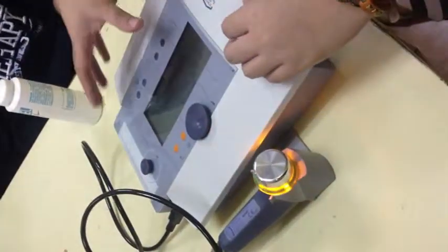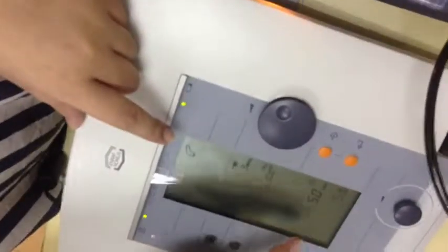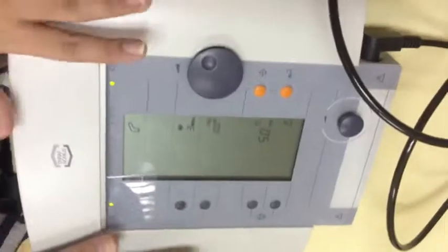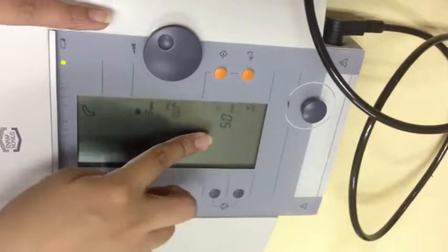And then, ang una nyo makikita kagad sa screen, okay? So, meron tayong, again, apat na options here. So, pag nagbi-blink yung time, that means nagsistart na mag-give off ng sound energy. So, dito, since hindi pa nga in contact yung head dun sa surface, hindi pa nagsistart yung time. Okay? Kaya nakasteady lang yung time natin.